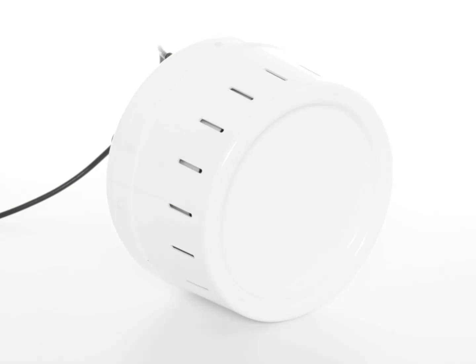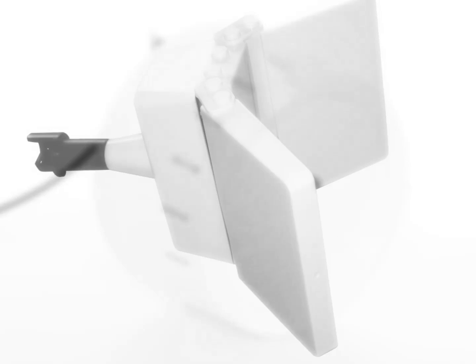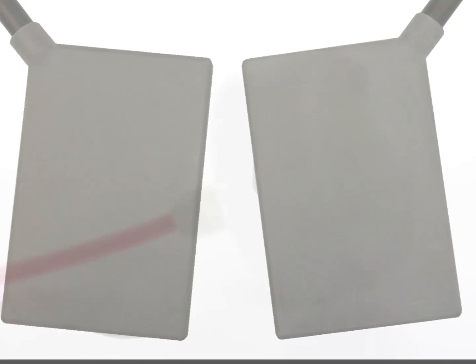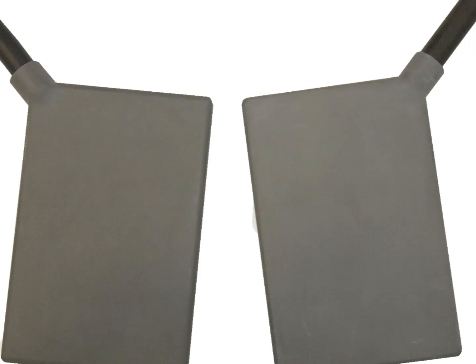Finally, the Megapulse Senior can be supplied with a pulsed-only monopulse applicator, a multi-featured flexor pulse, a set of smaller capacitive electrodes, or a set of rubber electrodes. These are optional and should be stated at the time of ordering.